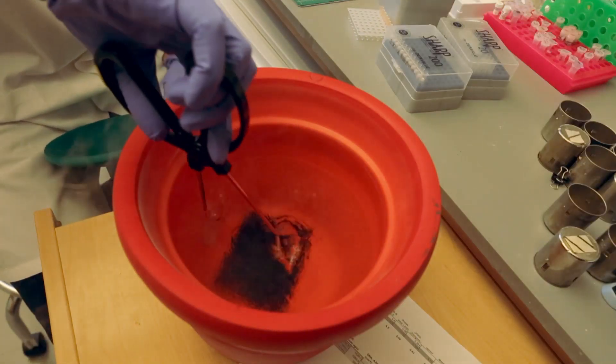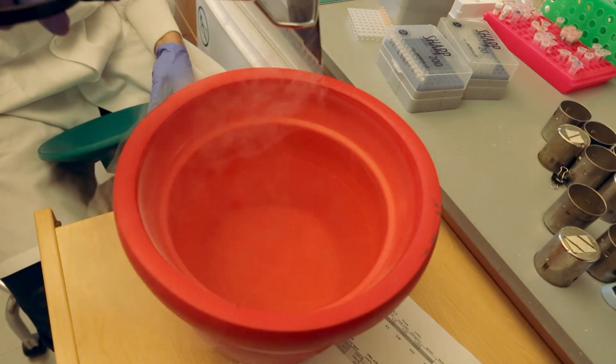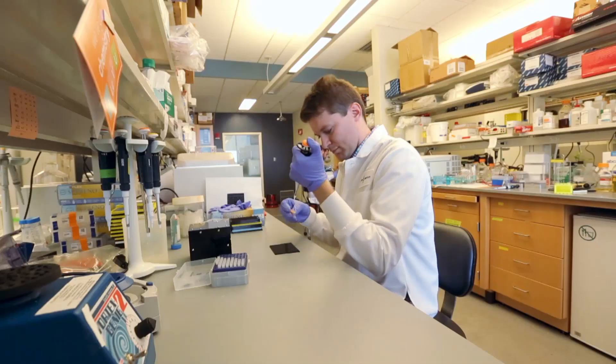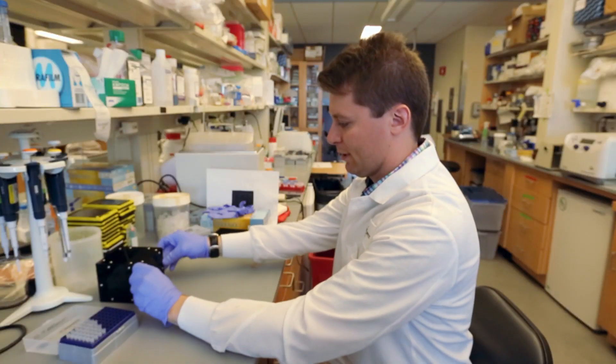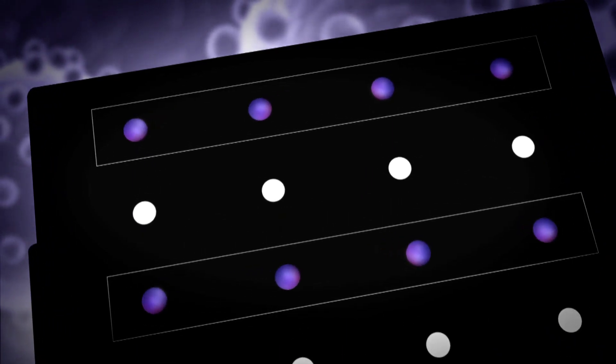The test can now safely be kept at room temperature and deployed easily into the field. When it's rehydrated, the cell awakens. Drop an amplified sample of someone's blood, urine, or even saliva — and in less than 30 minutes, a positive sample turns purple.